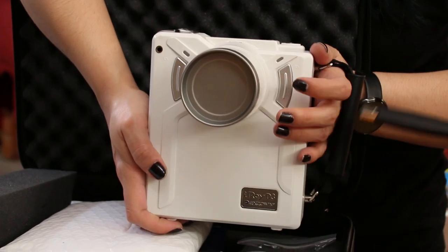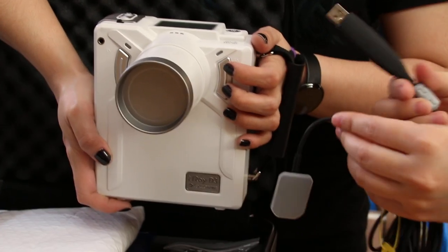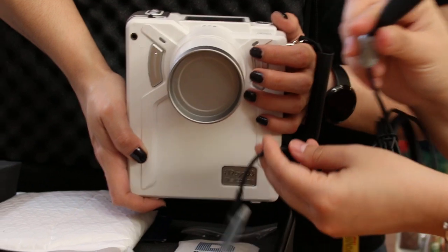So there are two methods, one is half semi-automatic, this one is automatic. It will go straight in the computer, straight by USB connection.